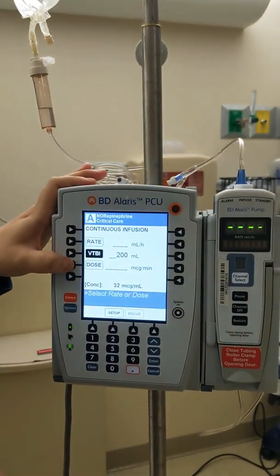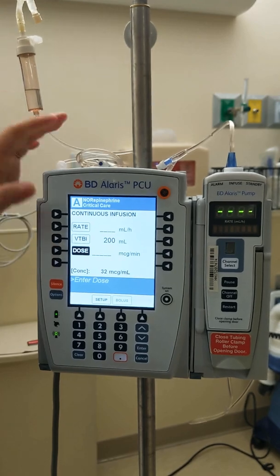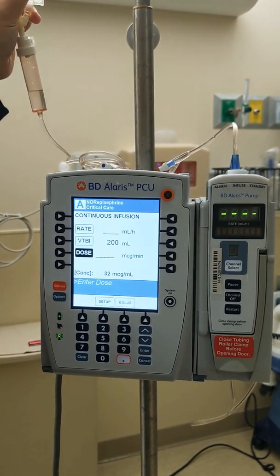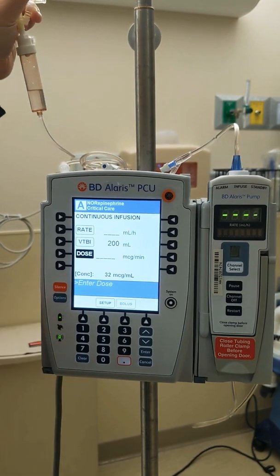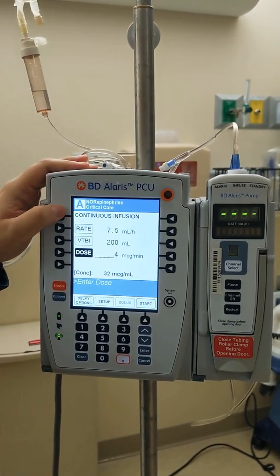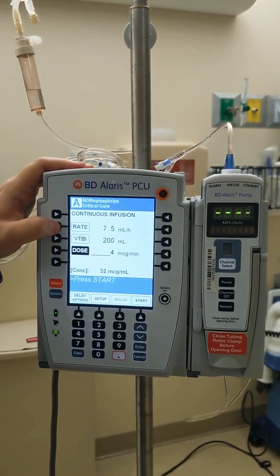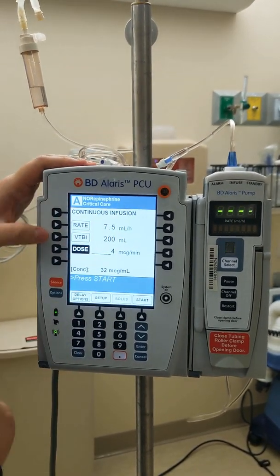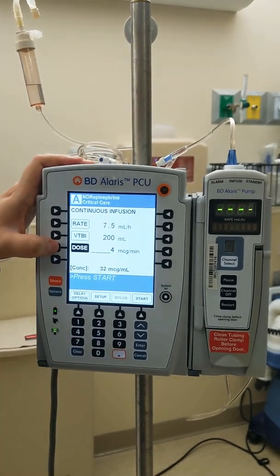Now I'm going to put the dose. You never titrate the norepi by the rate — it'll calculate it for you. When you give a report to a nurse, that's something important you need to let them know: it is running at 4 mcg per minute, not 7.5 ml per hour. The ml/hr doesn't mean anything. When you're titrating, you're going to titrate by dose.